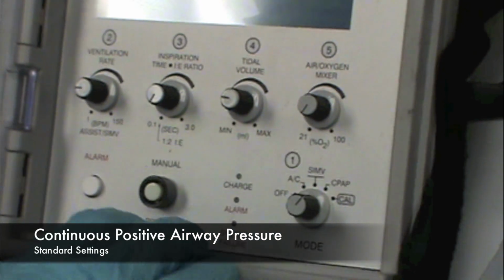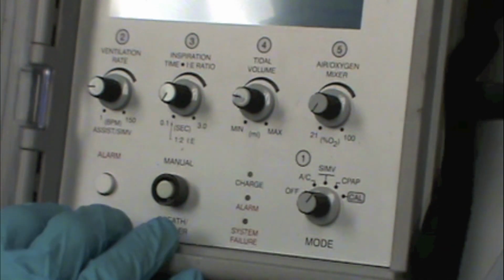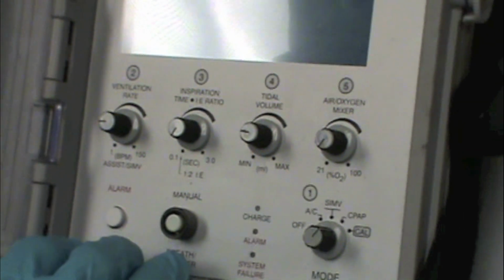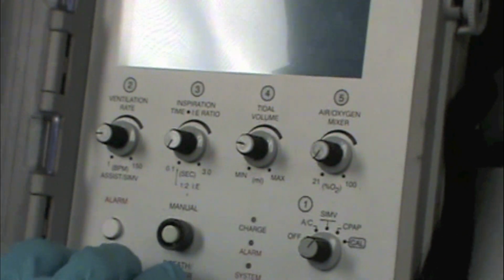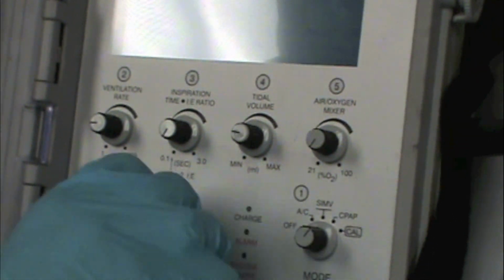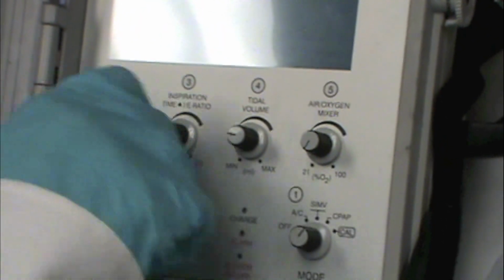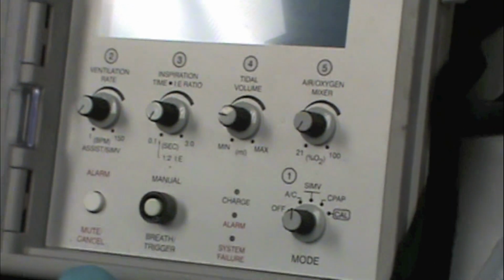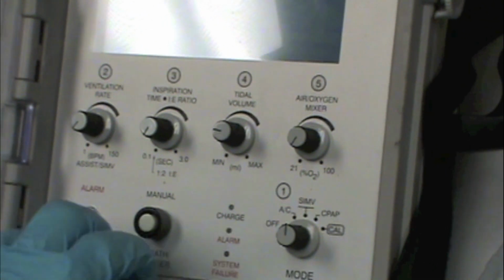CPAP. So this is not a substitute for your CPAP machine that you may be thinking of where you put a patient on a mask. This is not non-invasive positive pressure ventilation. The ventilator's alarming because you're not breathing. So I'm going to go back to the SIMV mode for a minute.